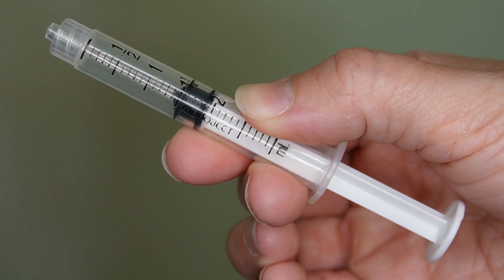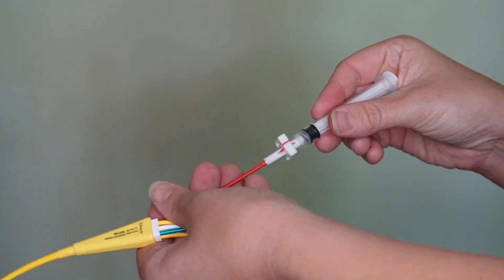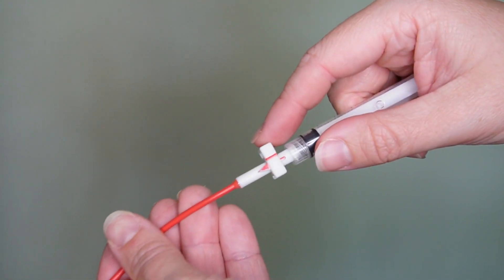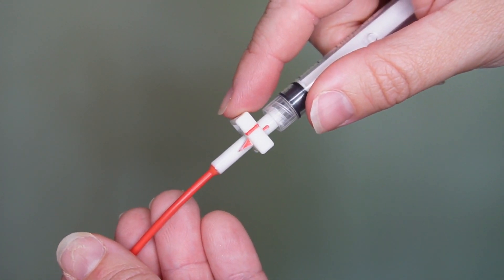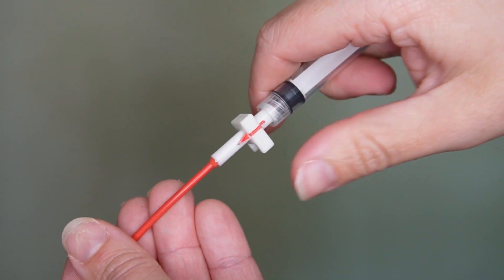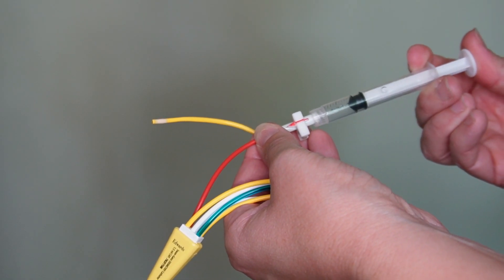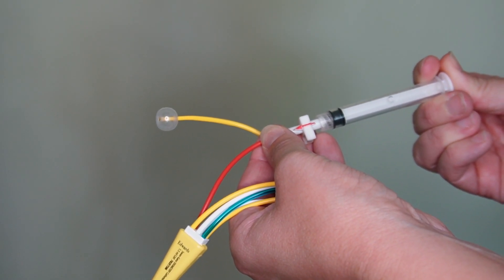The syringe connects to the red lumen on the PA catheter and the red lumen has a locking mechanism in it. When this arrow is out of alignment — not straight — it is considered to be locked. When it is in alignment or straight, it is considered to be unlocked. When the red lumen is unlocked, it allows for the air to inflate the balloon.